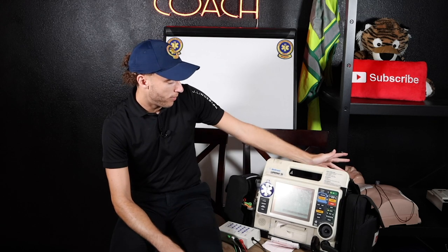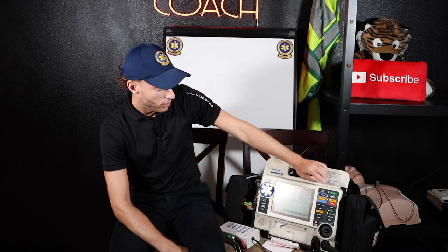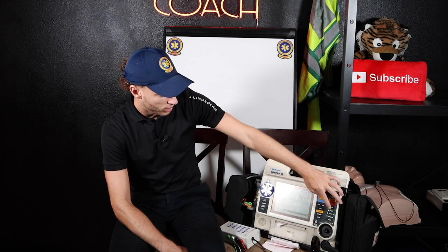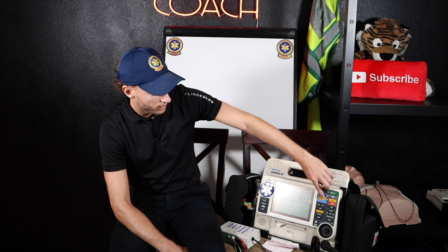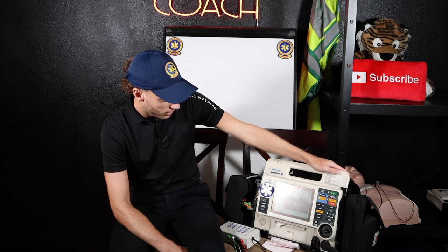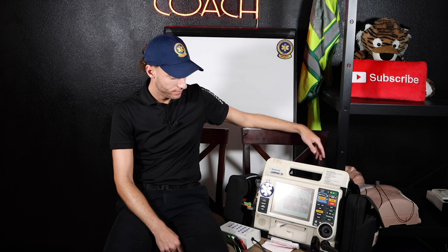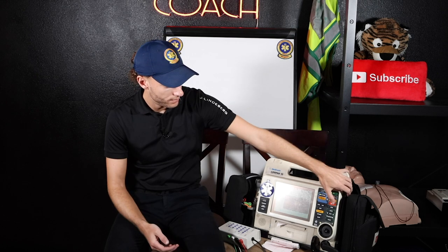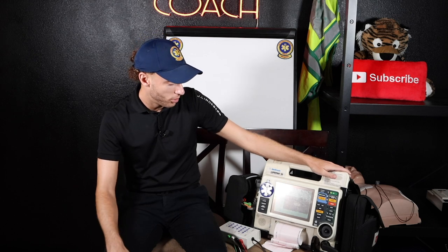Now I'm going to put this patient into VF. We don't really use this too much, but I'll give you an example — this is a little CPR section. I'm going to get this patient off the pacemaker. We're now in VF again. I'm going to show you where it says analyze. Let's do advisory — advisory modes monitoring. We're going to analyze. Analyzing now — stand clear. It will actually function as an AED as well. Shock advised. Stand clear. Push to shock. Clear, all clear. Shock. Start CPR. And then it'll actually lead you in CPR. Pretty cool.